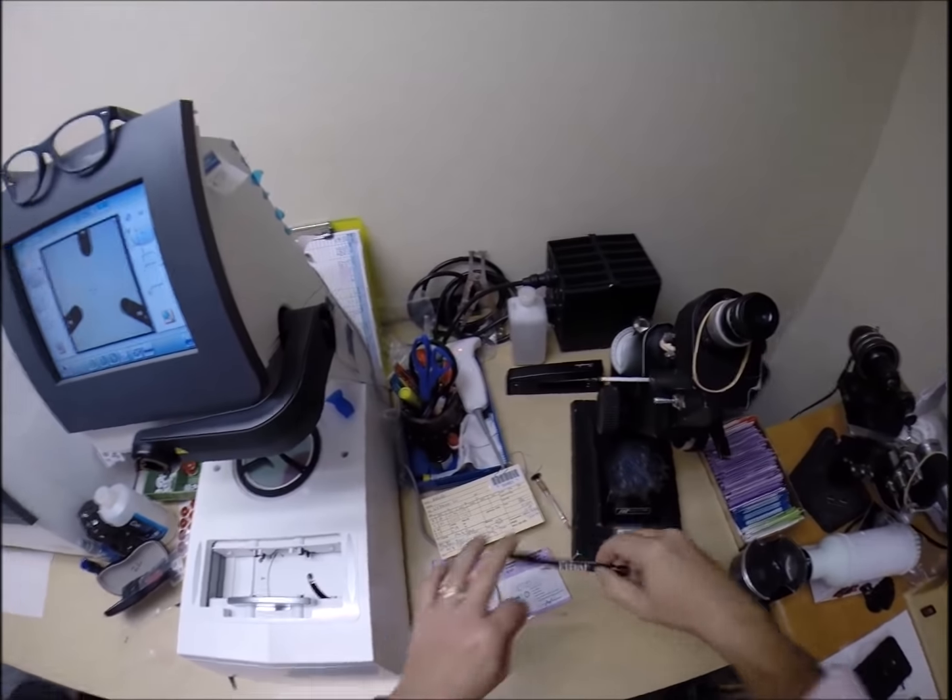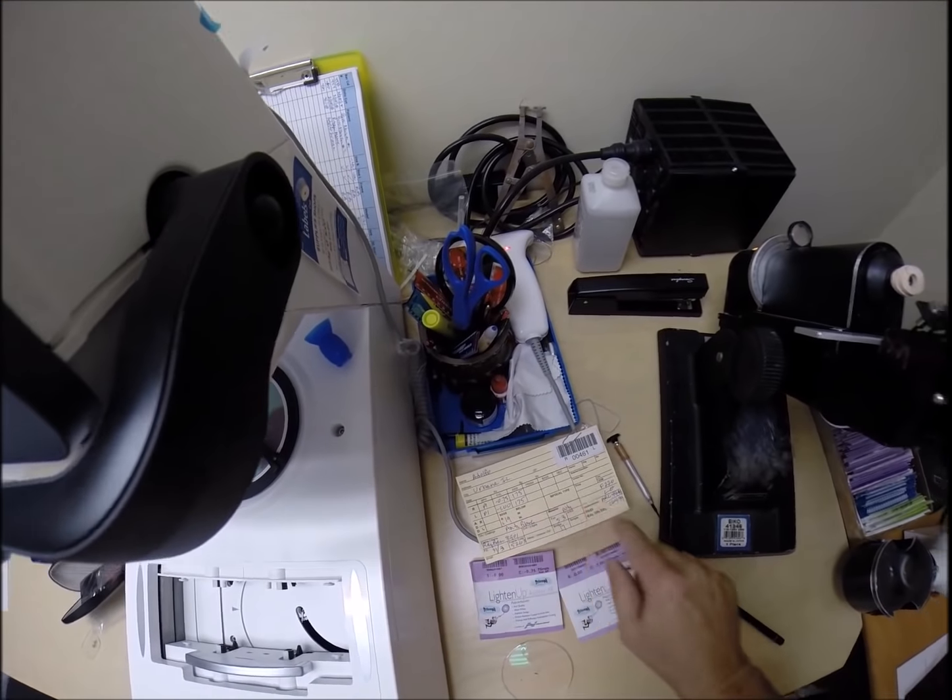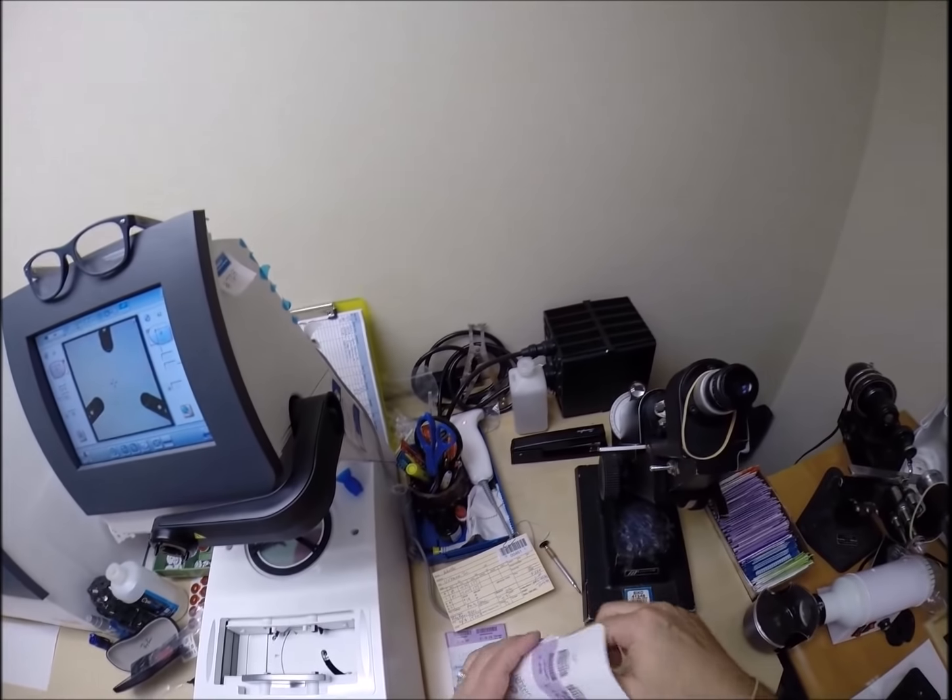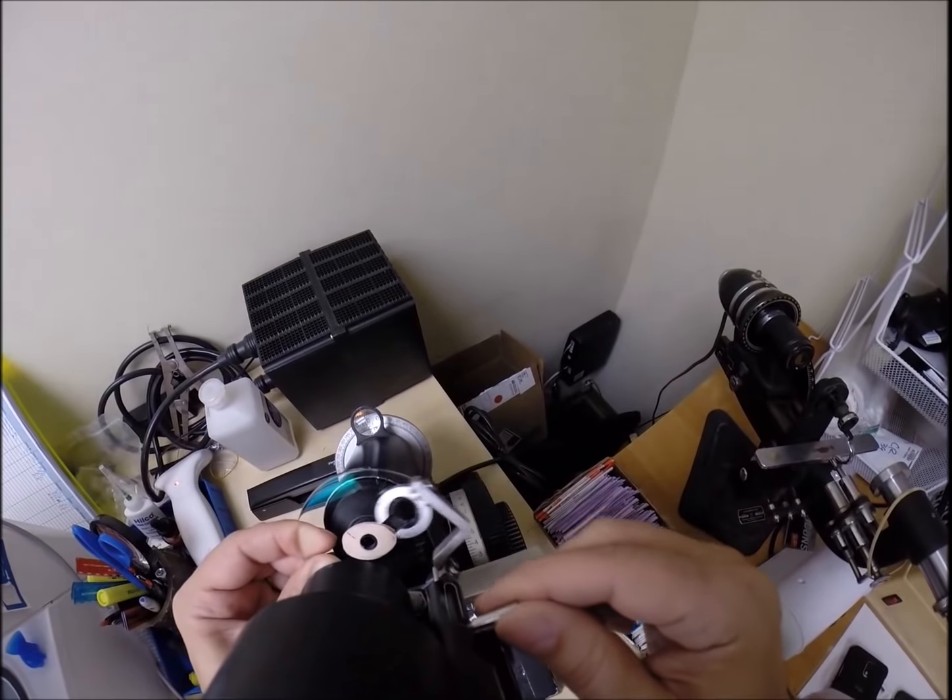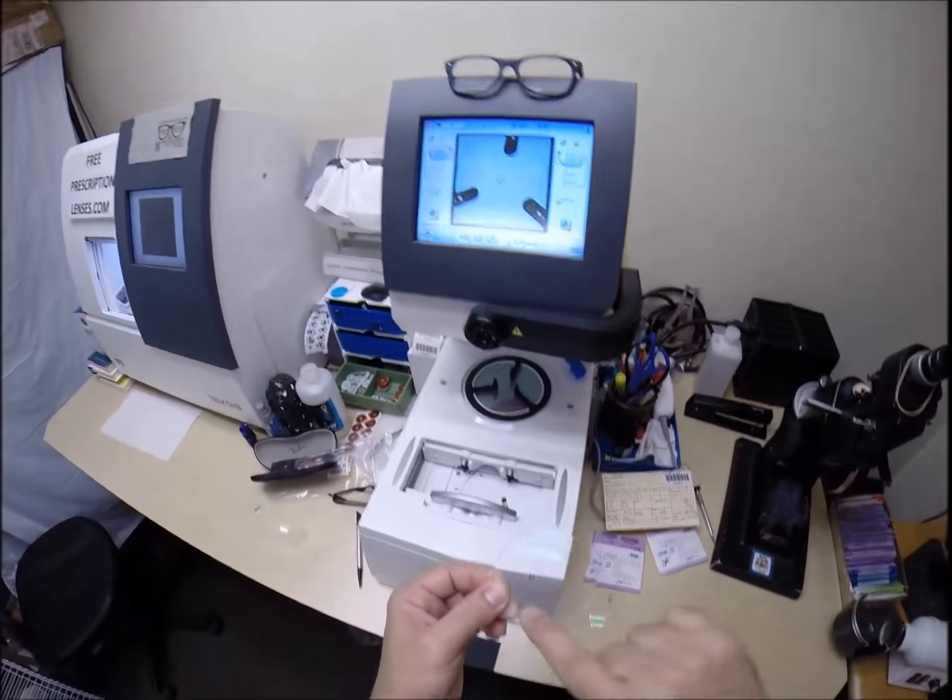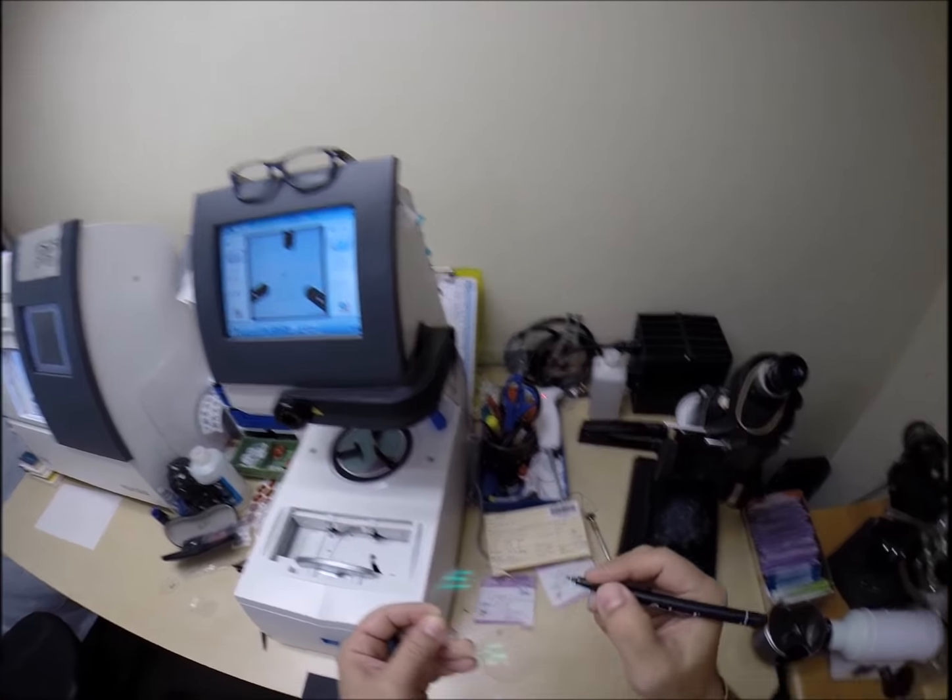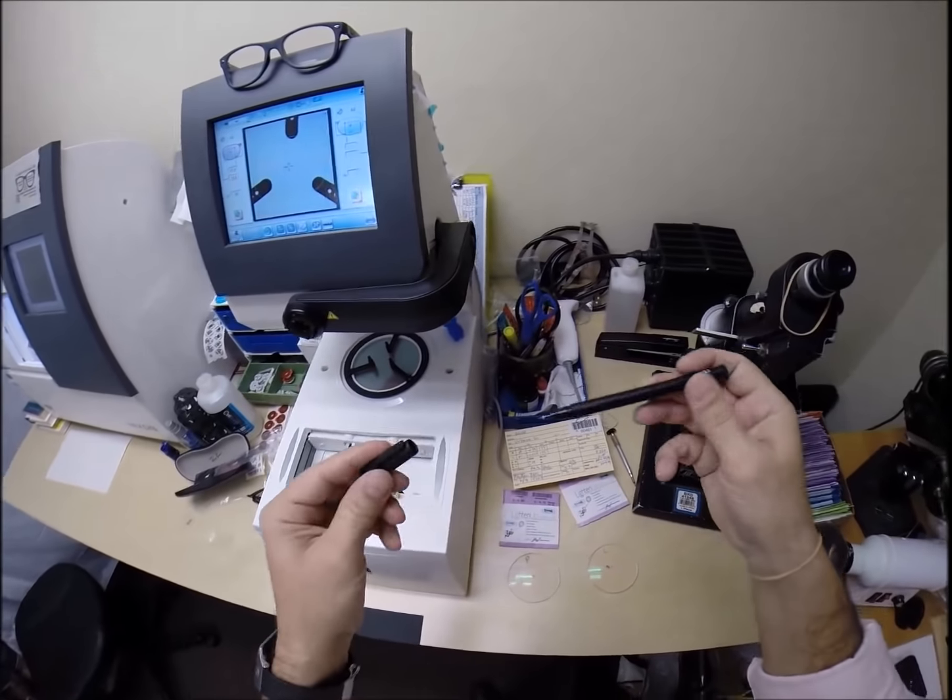And I am going to put three dots on your lenses. That is a big messy one. And this is the right lens. Let's do the same thing now for the left. Plano minus 1 at 175. And I don't have to change it. We are still on 175. You have the same axis for the left and right. I don't have to adjust the power drum. That stays on Plano. Just rotate the lens until the spherical component comes into view. Check your stigmatism correction. Minus 1. And then put three dots on these lenses. That is a big messy kiss that you usually get from an ant at Christmas time. I just put some more ink in there. That is why it is all messy. And this is the left lens.